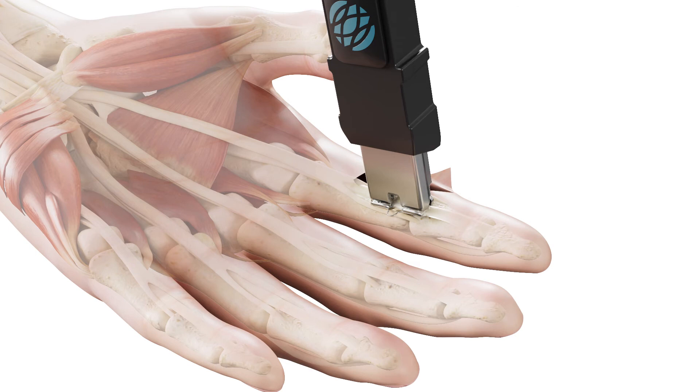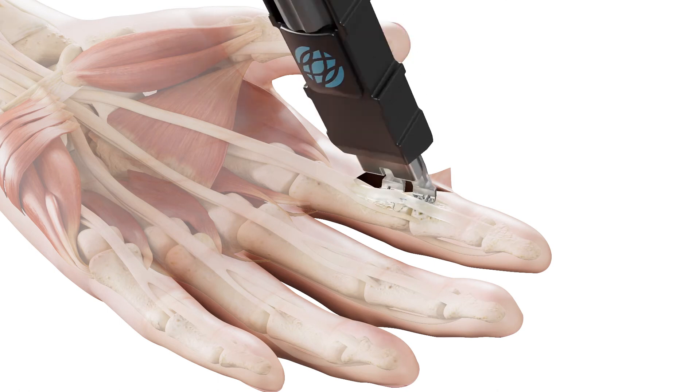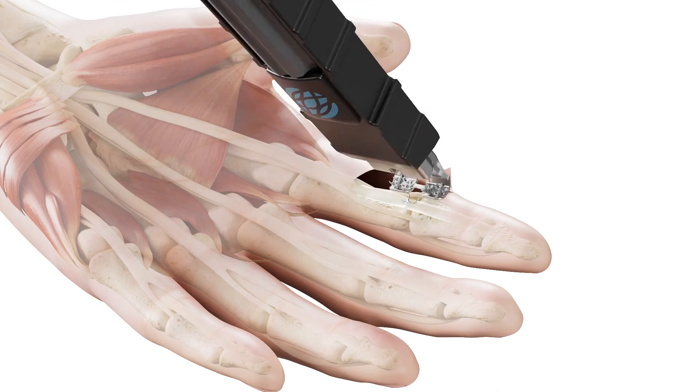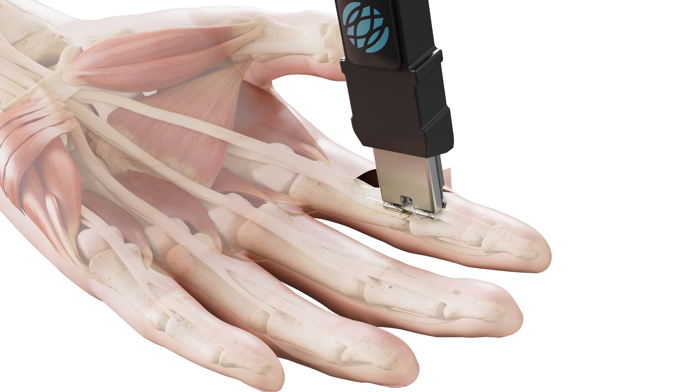The process of positioning the tendon in the cradle and engaging the tendon can be reversed and repeated as many times as necessary prior to deployment of the implant.